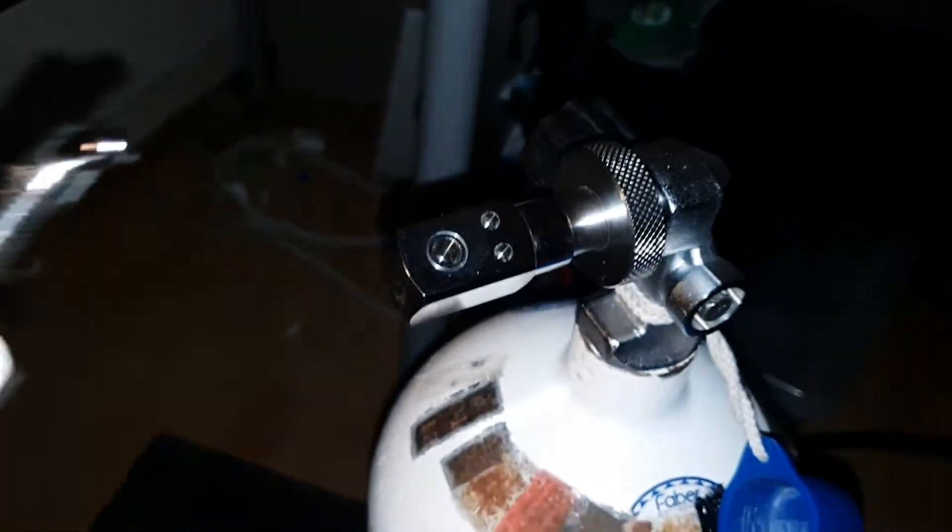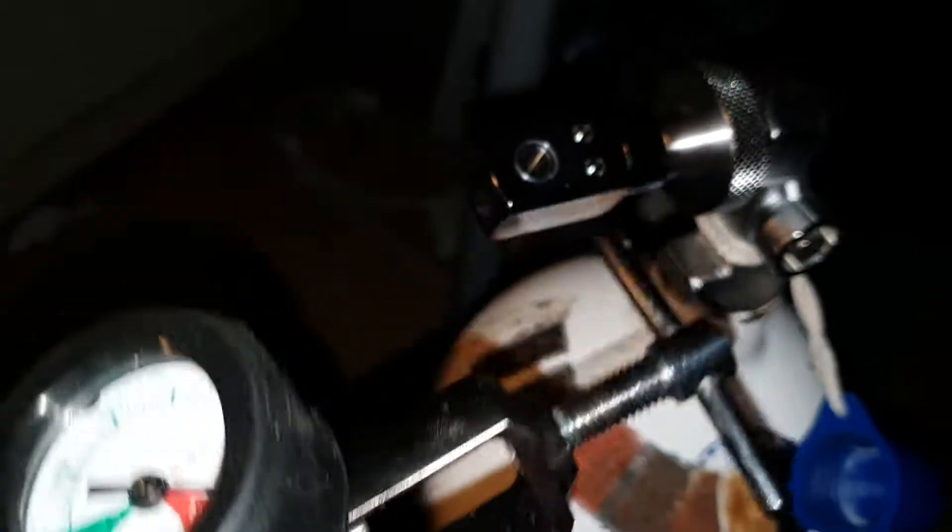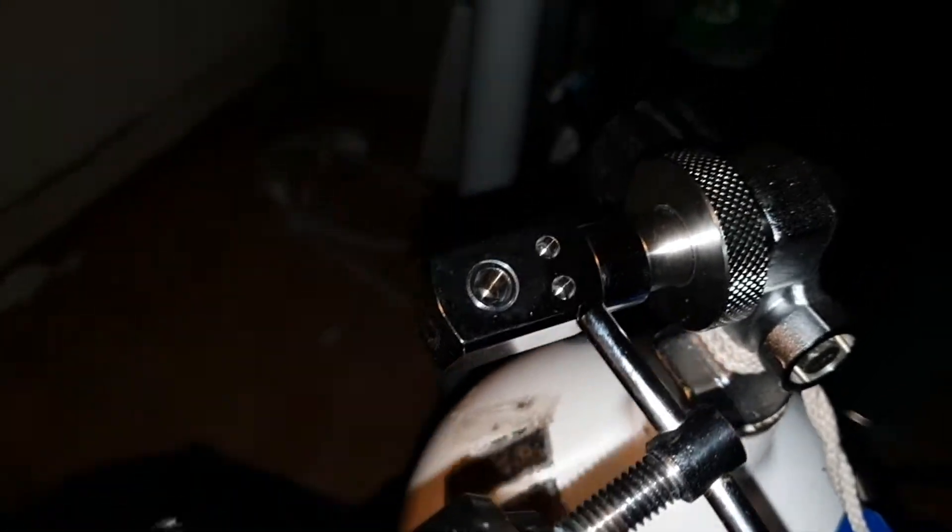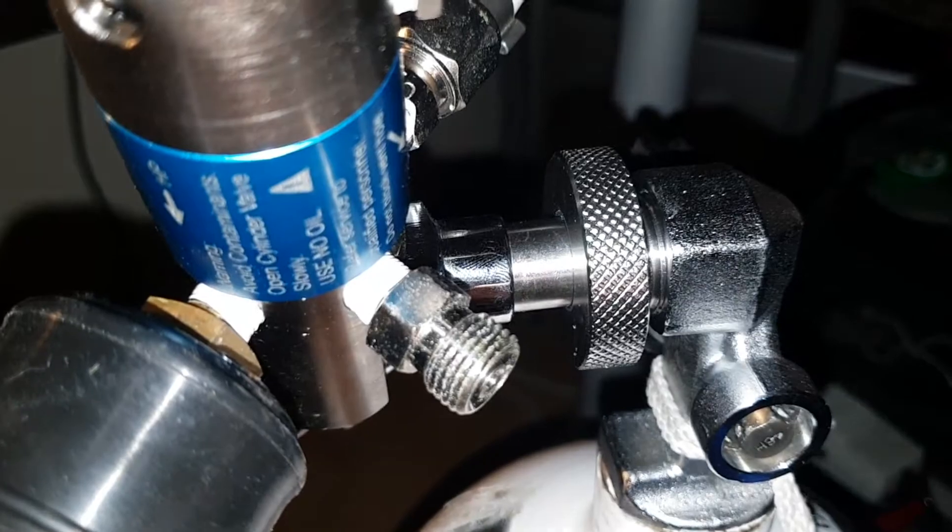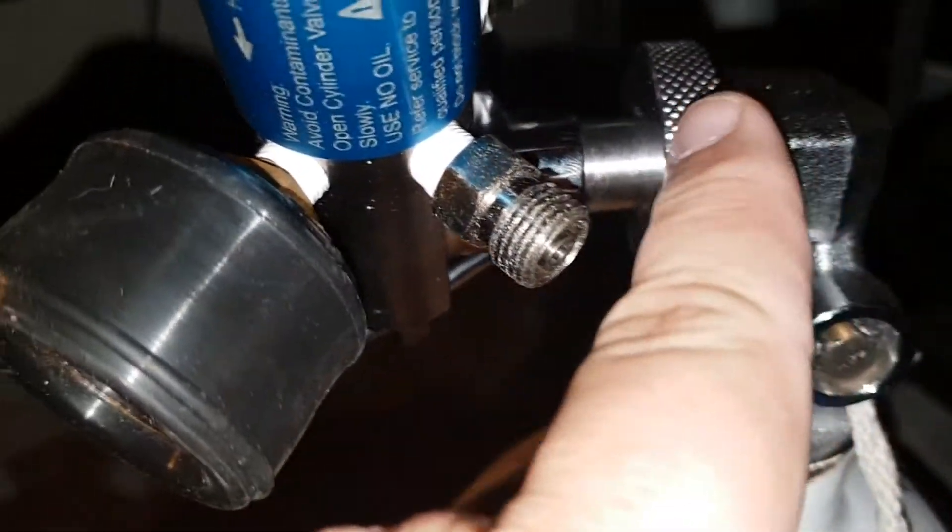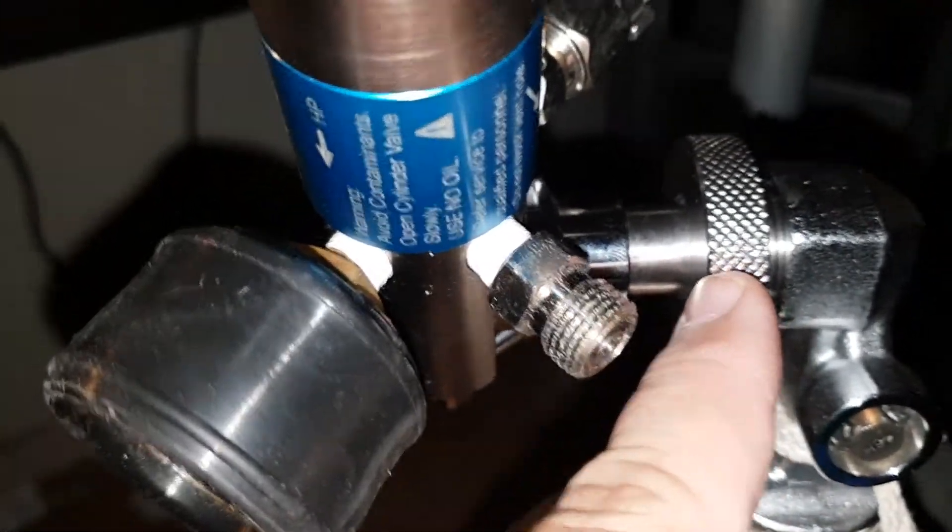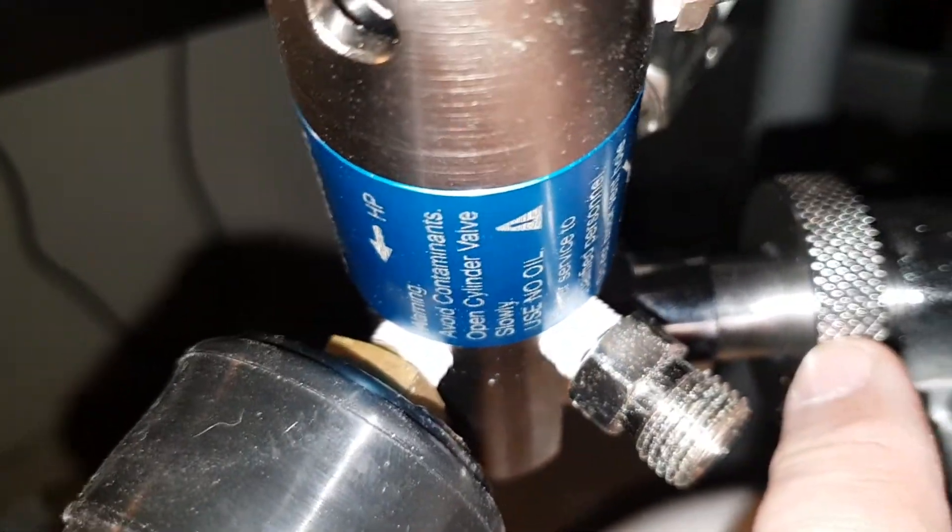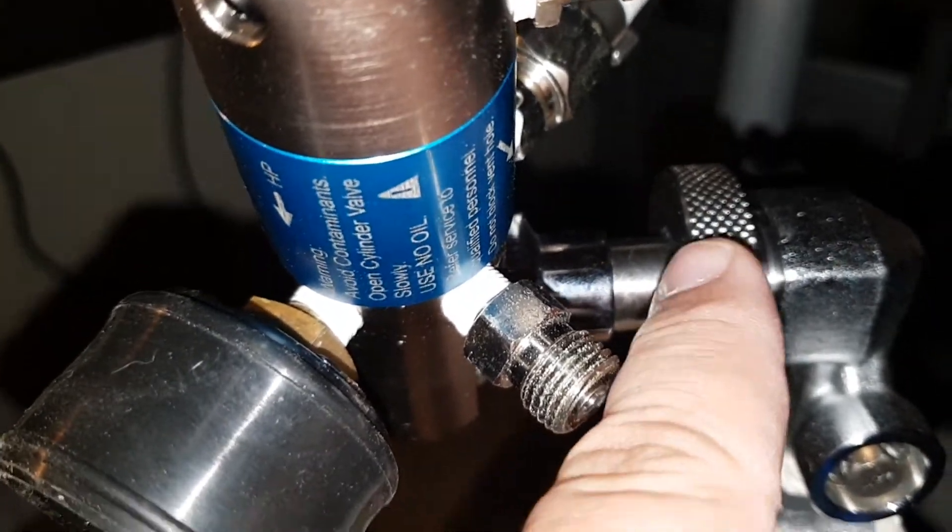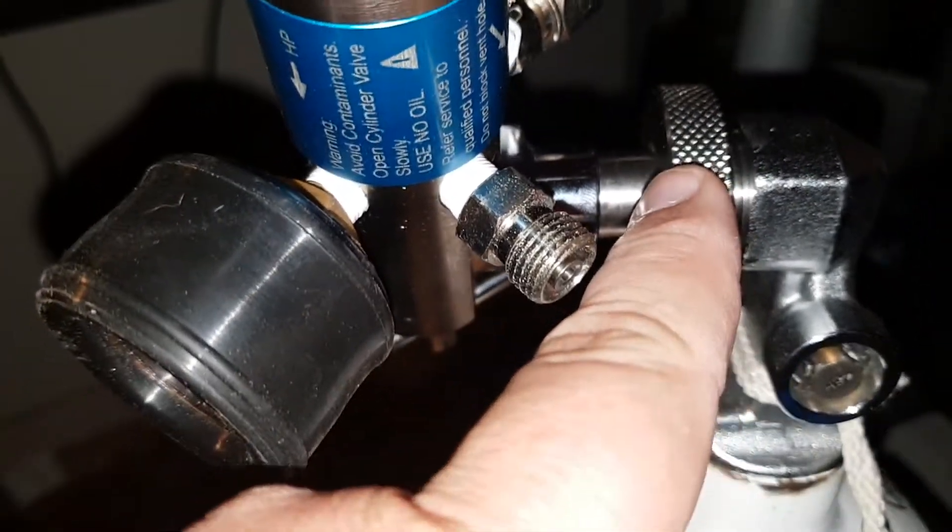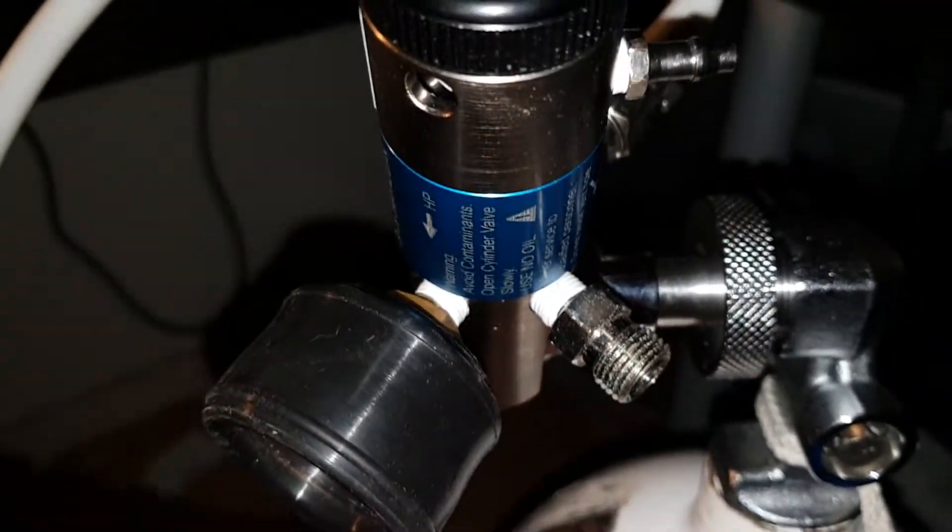So with that in place, you can fit a standard medical regulator. As you can see, we've fitted the adapter, which is about 70 pounds, 140 dollars, or 200 dollars in Australia. The regulator goes onto there, and you see this nipple here.